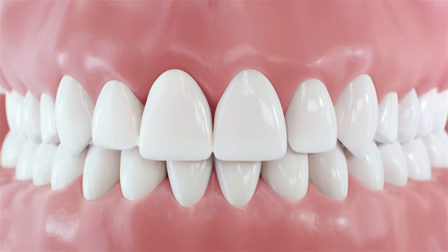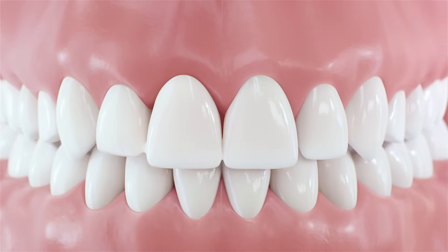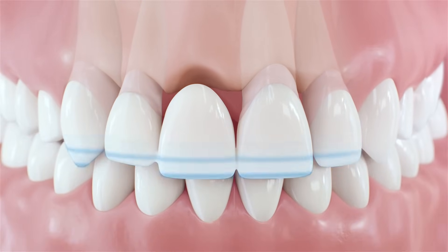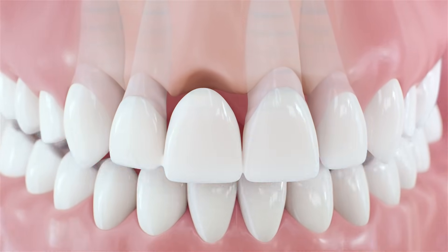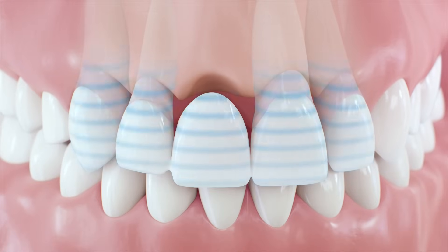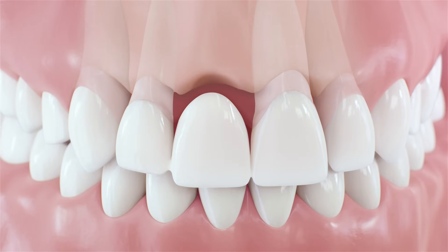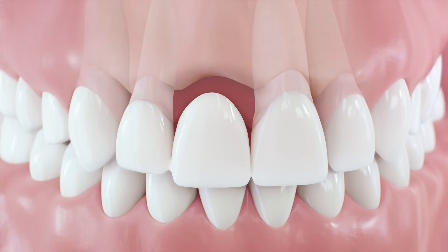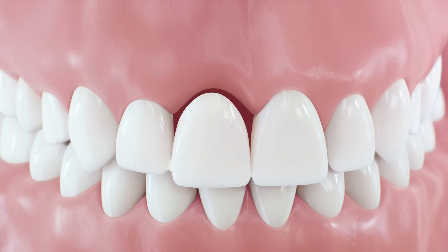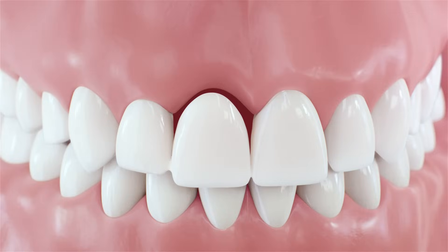Unlike a natural tooth, the artificial tooth is not directly attached to the jawbone. The bone region directly underneath the artificial tooth is no longer affected by the pressure generated by chewing. Without that pressure, the bone region deteriorates over time. The overlaying gums deteriorate as well. As a result, a gap between gum and bridge will be clearly visible.